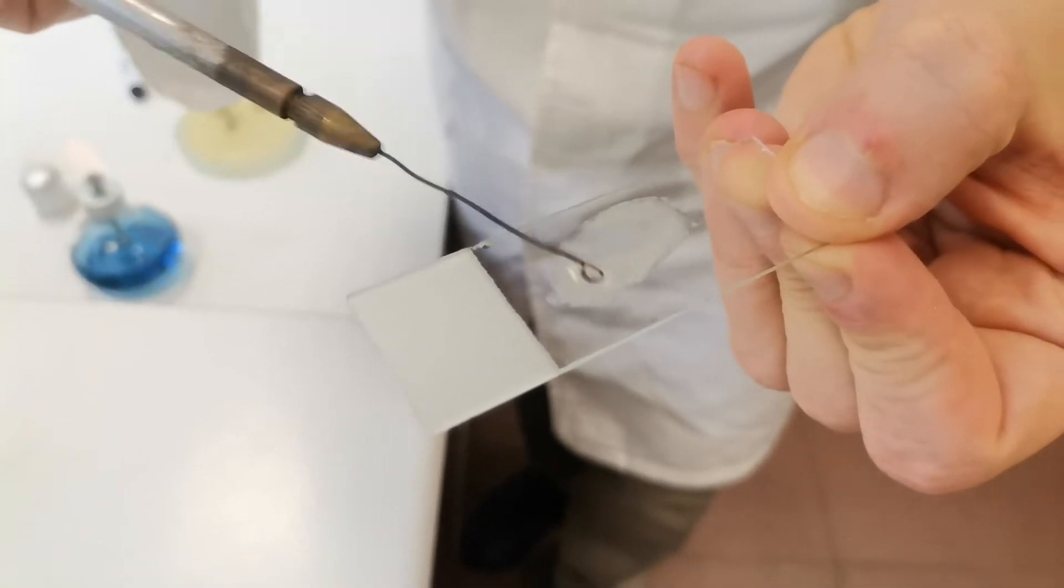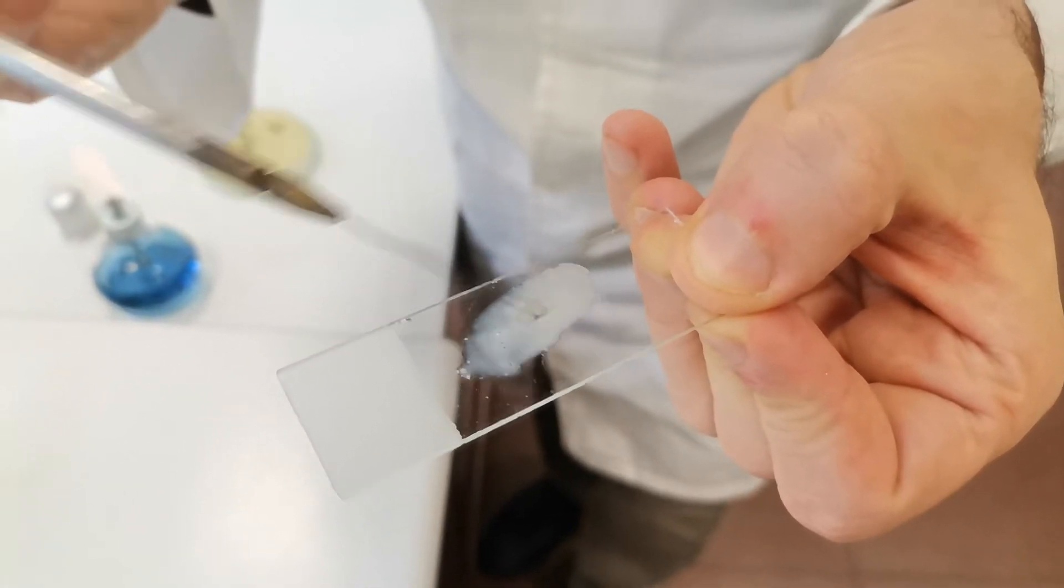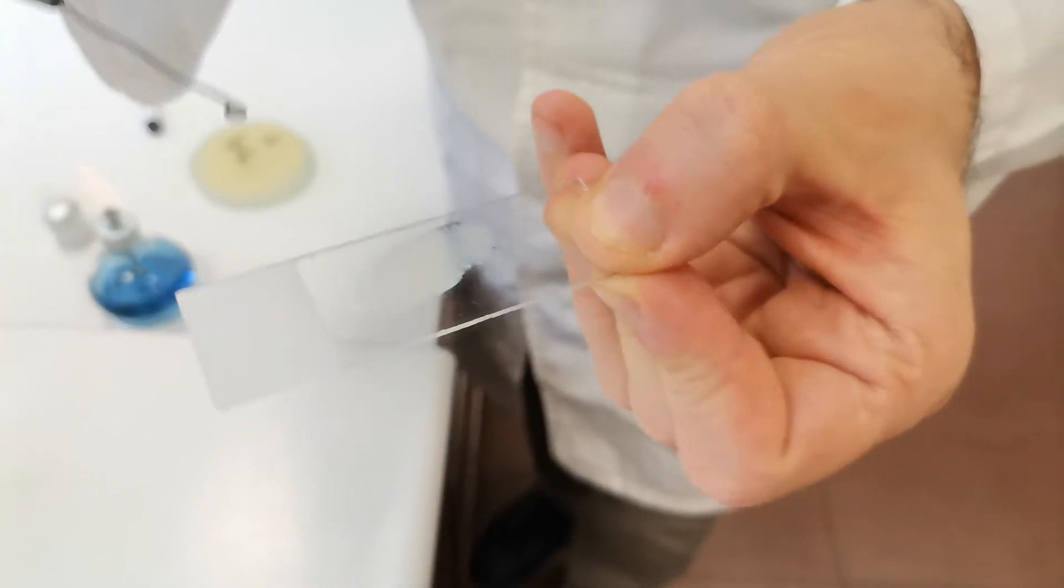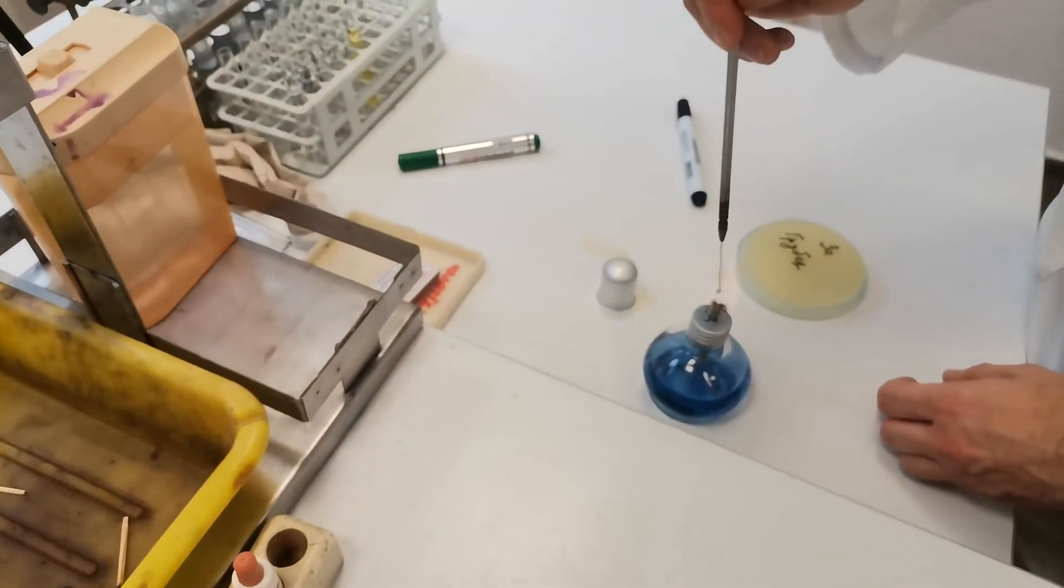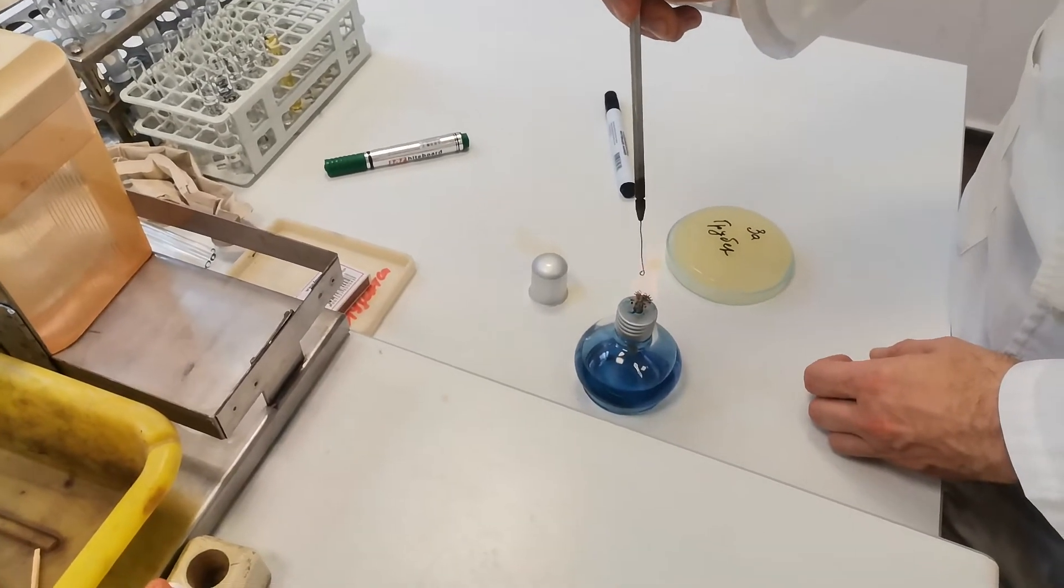In a positive reaction, there should be some small particles visible, like very fine grains. But also, the drop should become clear. This is totally cloudy. Then we need to sterilize the loop again in order to kill the rest of the bacteria on the wire.